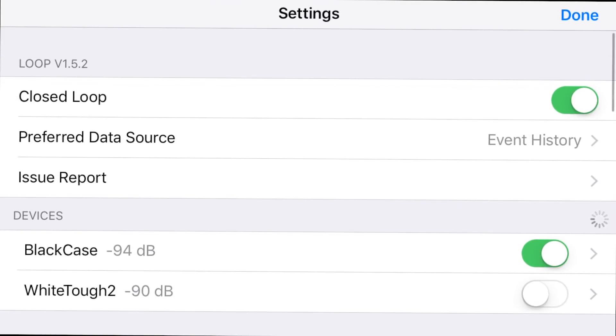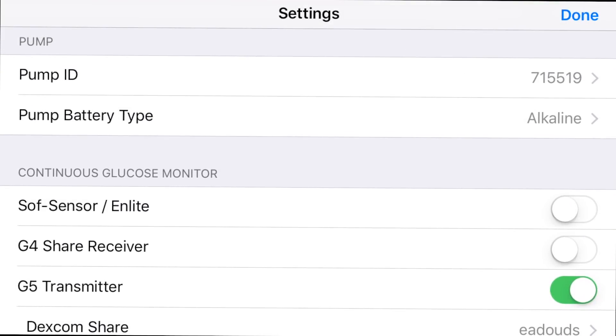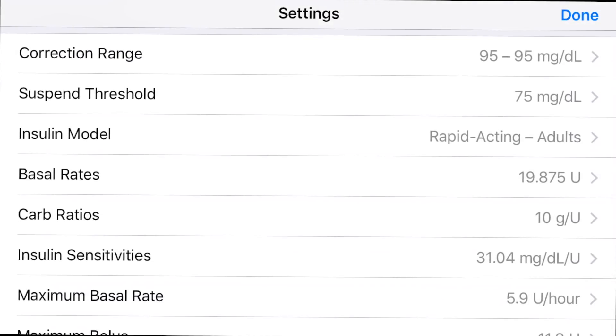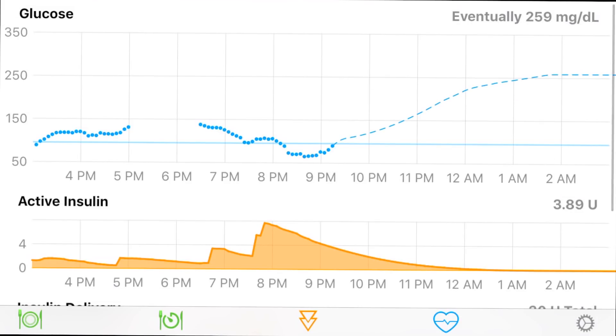This bottom arrow lets you set up your actual pump ID, your transmitter, and your insulin model — setup and a little bit of troubleshooting. Overall, what's really nice about looping versus OpenAPS is that looping is more controlled and easier to use. OpenAPS you can think of as having more collaborators, so there are more features, but it's a little more difficult to use.